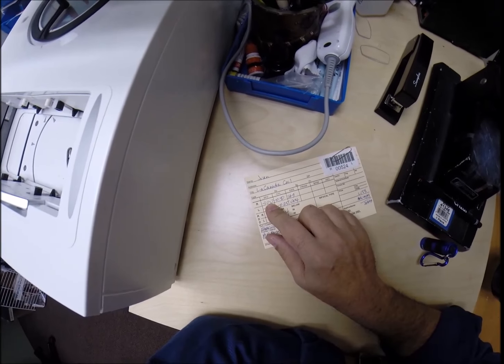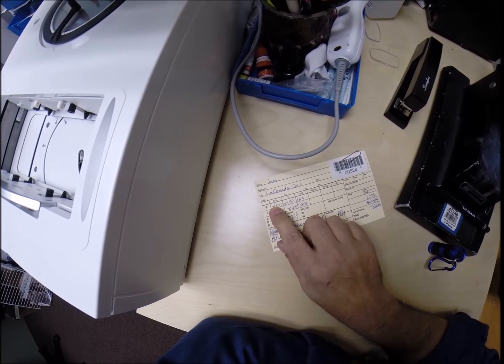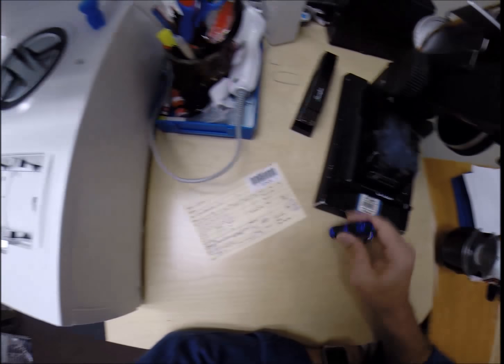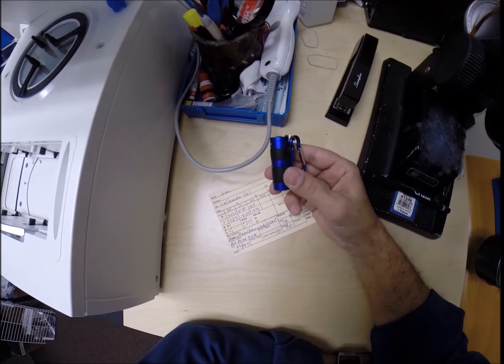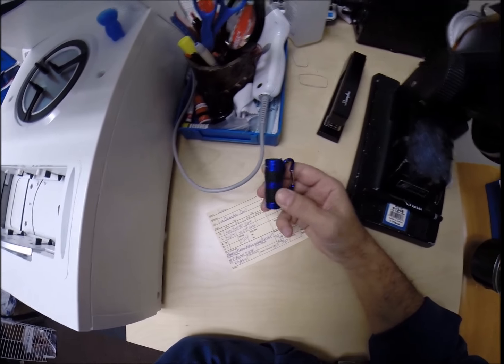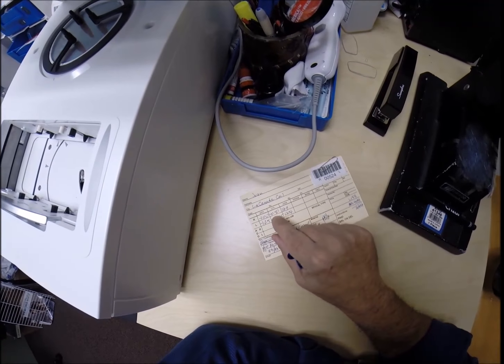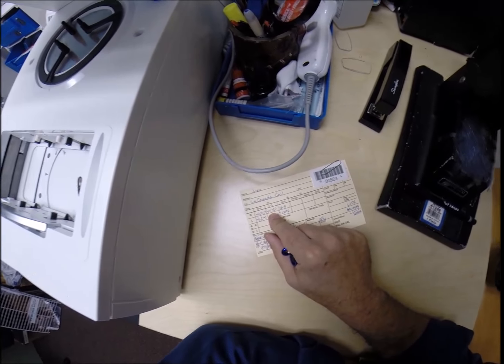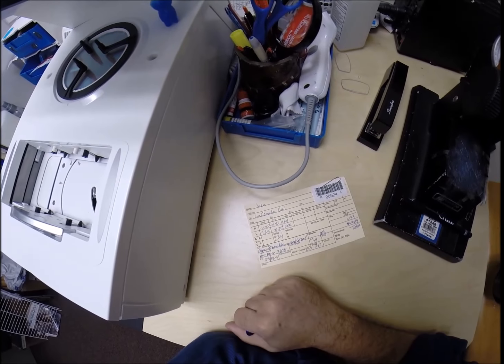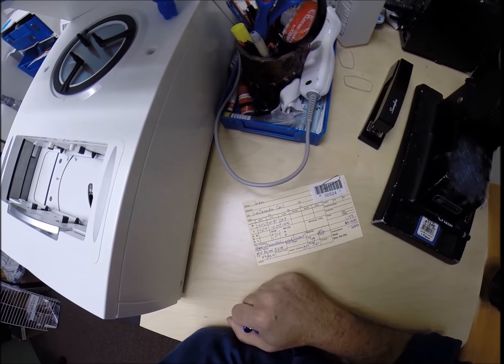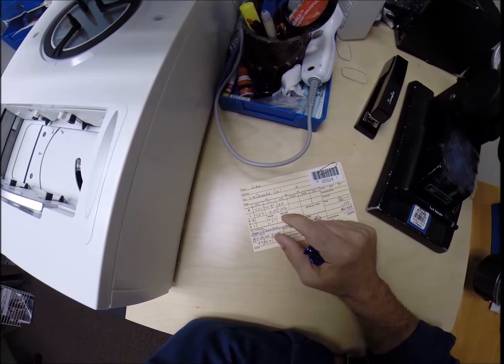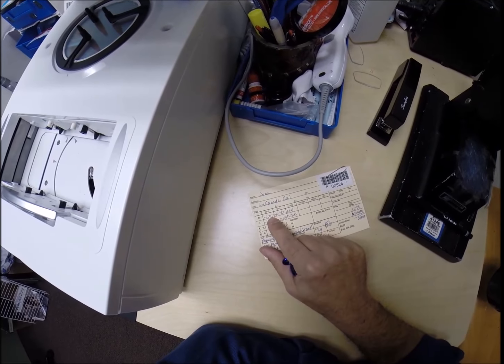You are nearsighted. Without your glasses on, everything is much too large. That's why there is a minus sign. Your lenses will minify this with your glasses off as too large. So, when you put your glasses on, this becomes the correct size that it should be. Now, you have, once it's the correct size, you have two steps of astigmatism correction. There is a stigma over the word astigmatism. It just means shape.